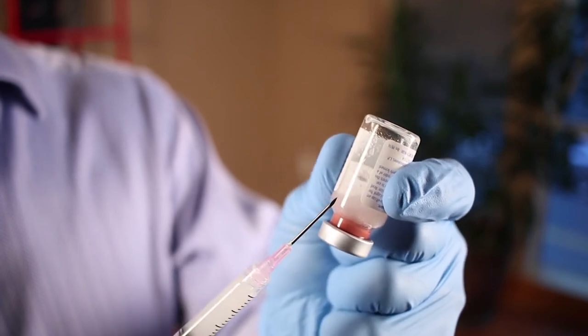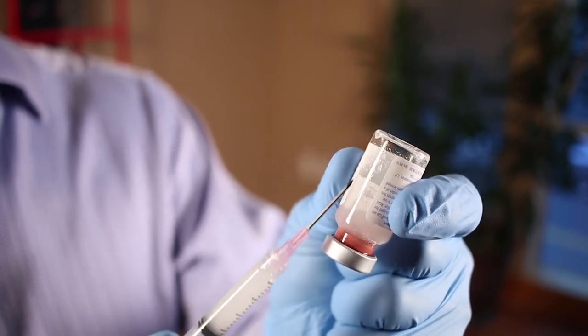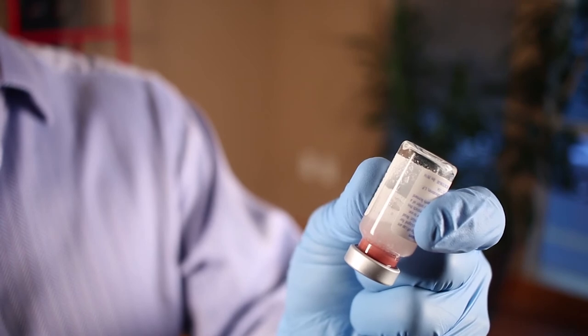Lastly, when you draw the Sculptra you don't take the very last drop. Everyone wants to get every little bit out of the vial, but it's not designed that way. Look how much is in the vial, look how many milligrams are in there — it's an odd number. You're not meant to get the last 0.5 to 1 cc out of the bottom.